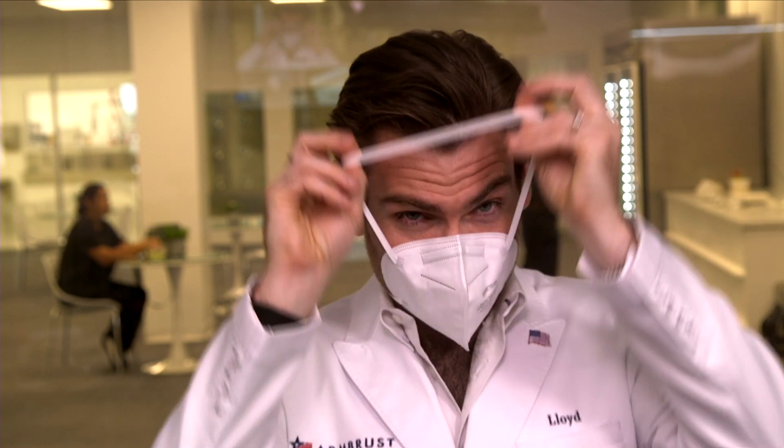The difference you're going to notice is it's got head straps instead of ear loops — the KN95 goes around your ears, this goes around your head. Why is this different? Is it better? It is better — it's better on the fit. It's going to give you a much better seal and it's not going to hurt your ears either. So a lot of people prefer the KN95 style. I actually don't personally — I like the cup respirator — but that is a really good seal. And that nose wire in there is just so good. This is obviously a lot more efficient to make because of how it's made in a single line.